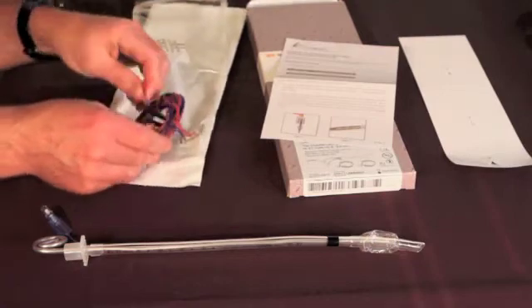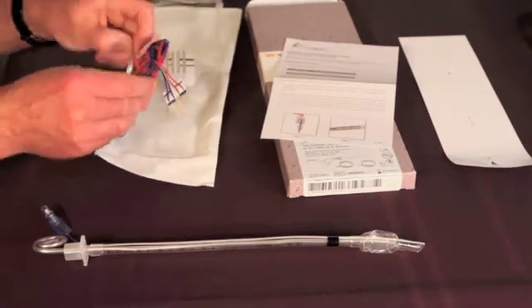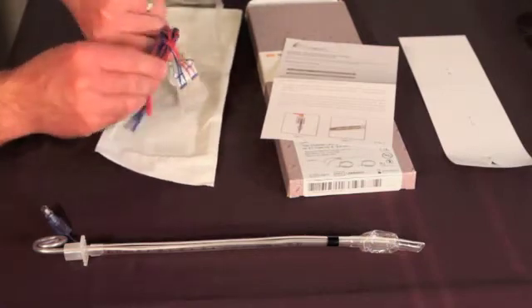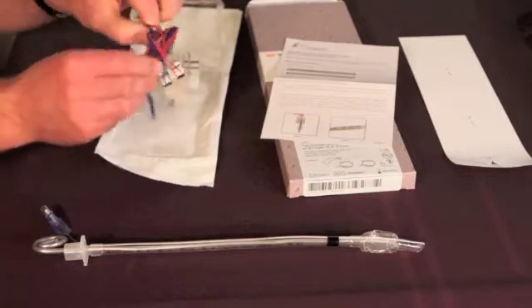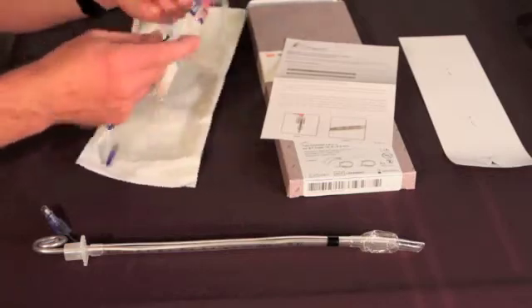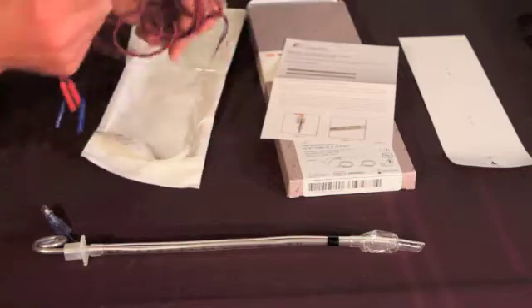The next step is to uncoil the connectors at the end of the lead wire bundle. It's just wrapped around a few times for packaging and now you see that it comes apart quite easily.